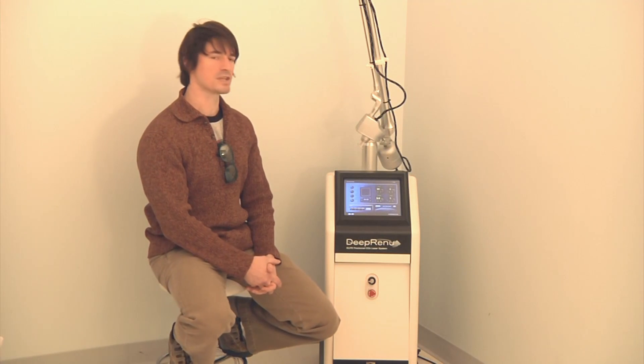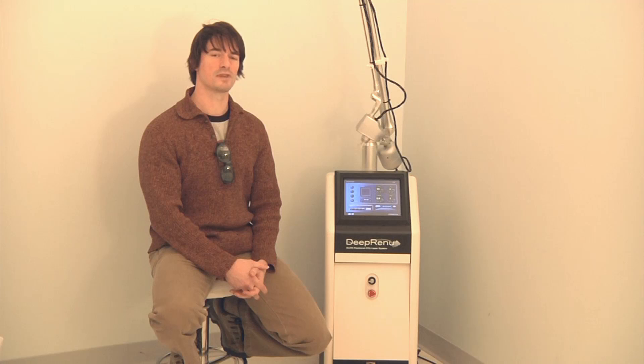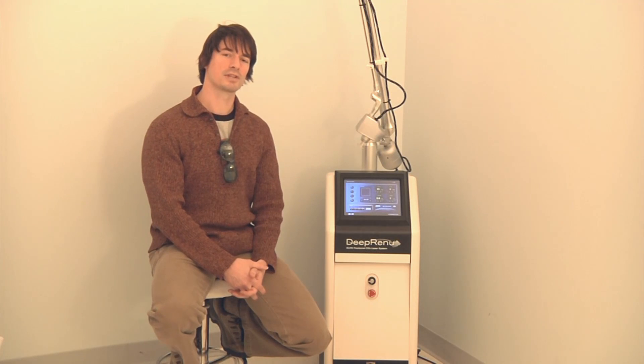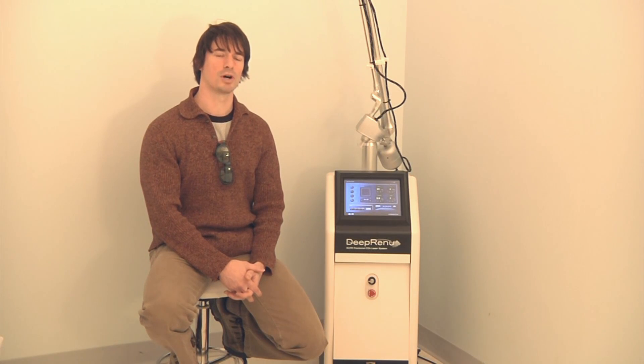One of the benefits of this device is, as you can see, it is a very small profile. Over time, CO2 lasers have evolved to become smaller, lighter, and more compact.